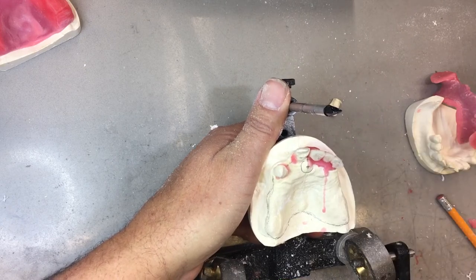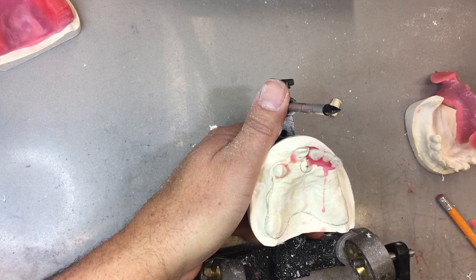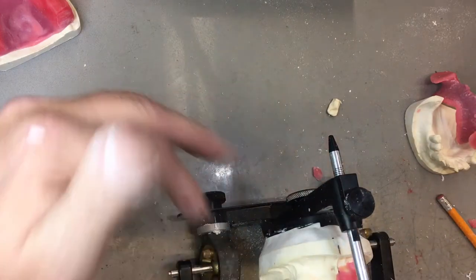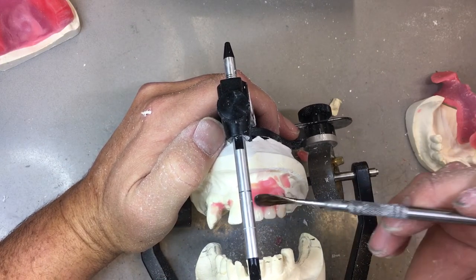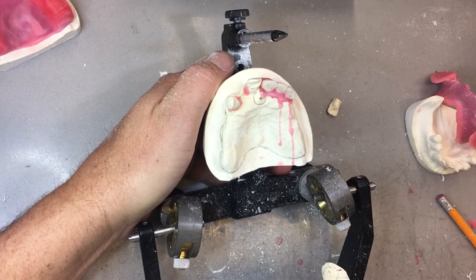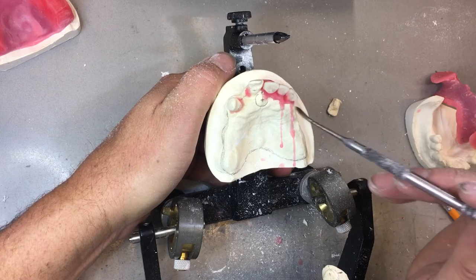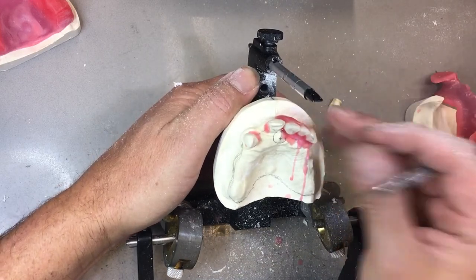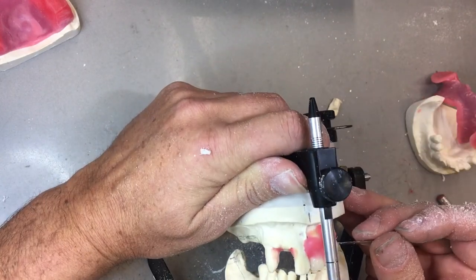Most of the time seems to be spent modeling the wax. Even though I was cavalier putting the first tooth in, I've probably already adjusted it ten times already while the wax is still soft for all three. We have to get away from setting up one tooth at a time — put it very close to where it should be, and then adjust it in relation to the next tooth. I'm still setting up these three at the same time: central, lateral, canine — creating the curve. I may change it more if I find this is out a little too much at the neck.